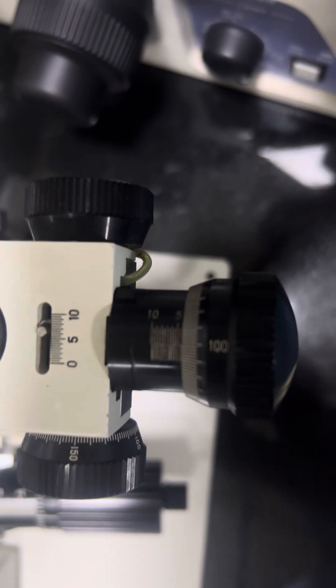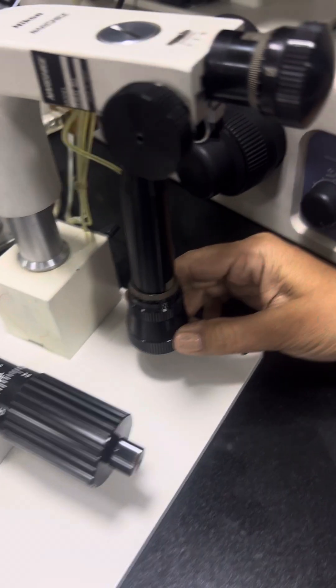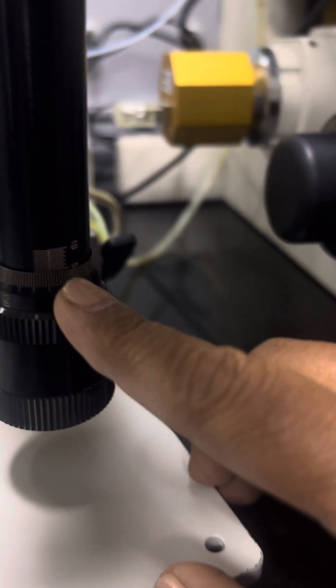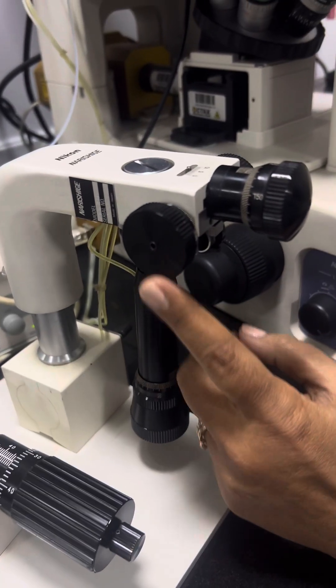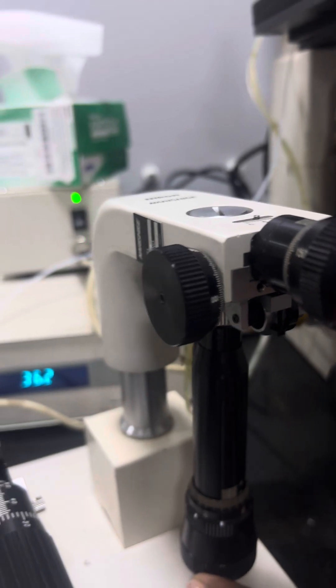X, Y and Z axis should be on 5. This is on 5 and this also on 5. All 3 axis on 5.